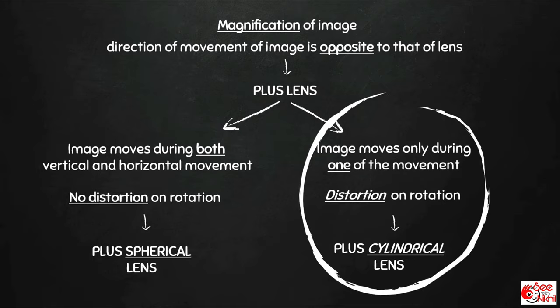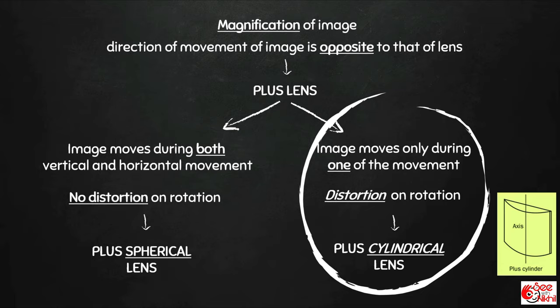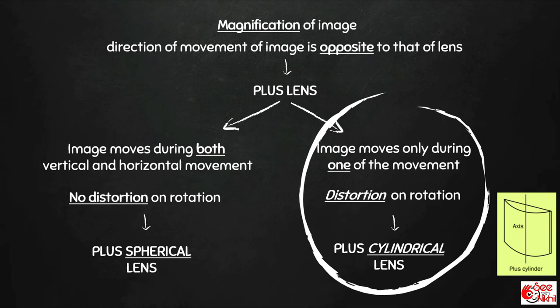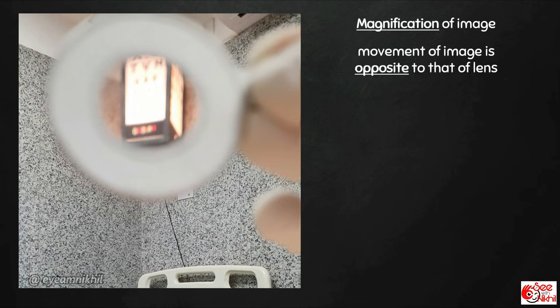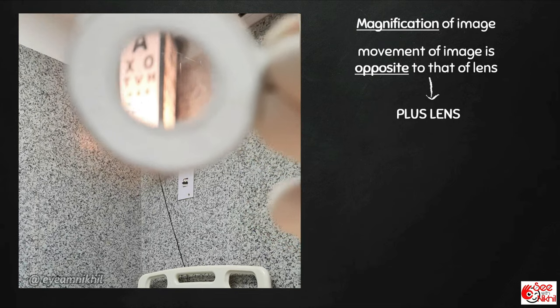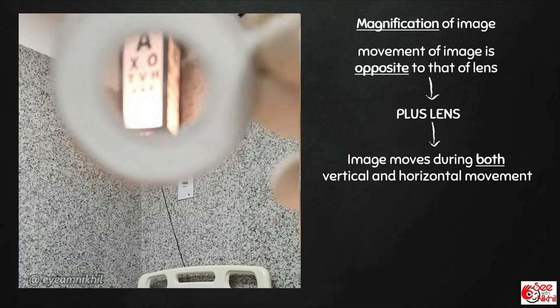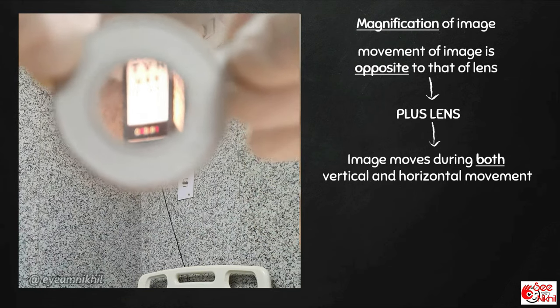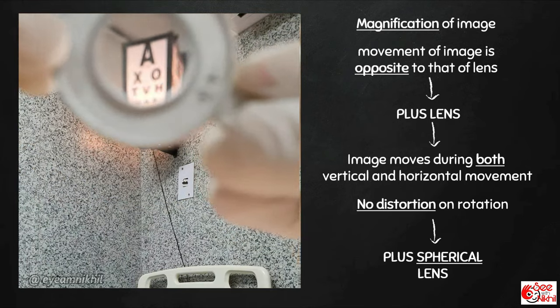This happens because a cylindrical lens acts only on one axis, and the other axis perpendicular to it has zero power, as compared to a spherical lens which has the same power all over it. In this video, there is magnification of image and the direction of movement is opposite to that of the lens — it's a plus lens. The image moves during both vertical and horizontal movements, and on rotation there is no distortion, which means it's a plus spherical lens.